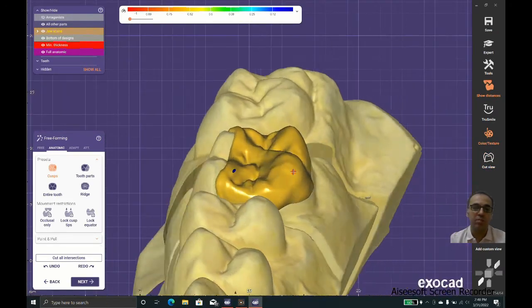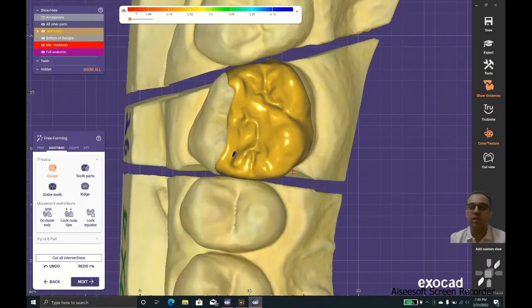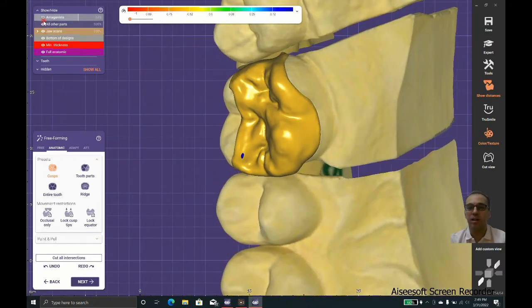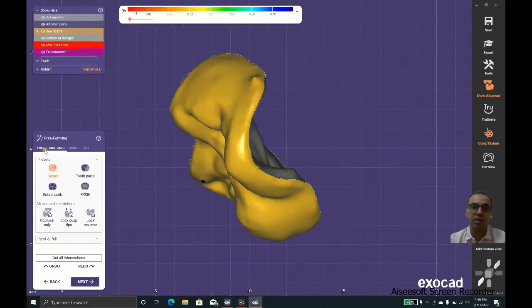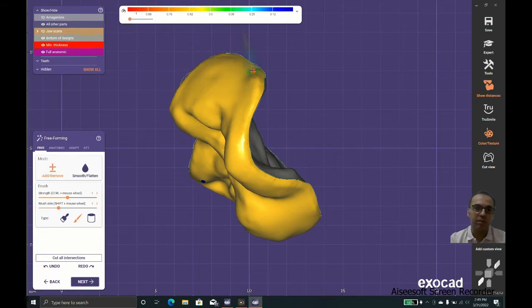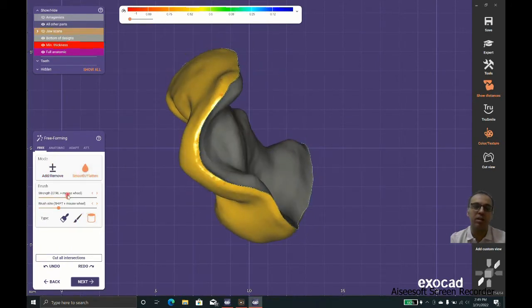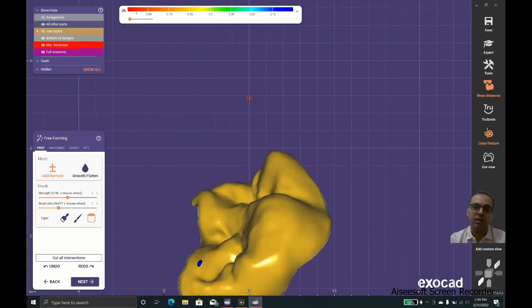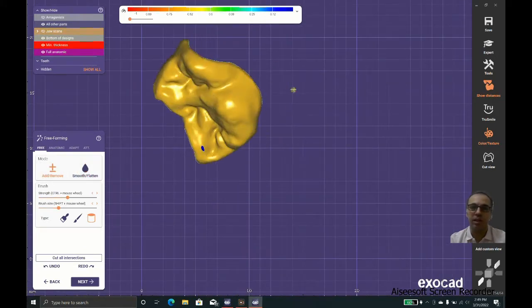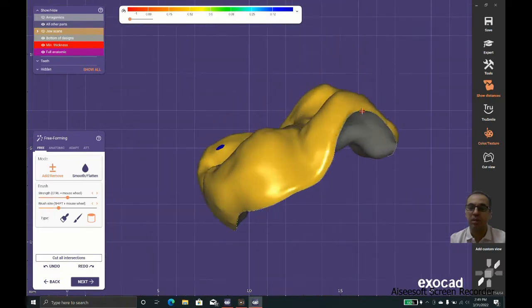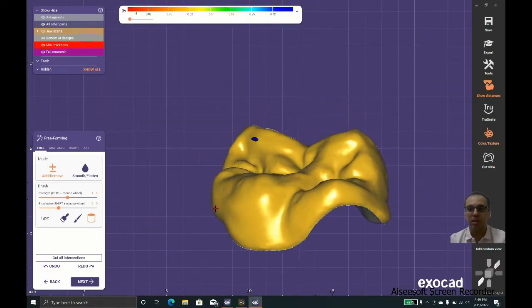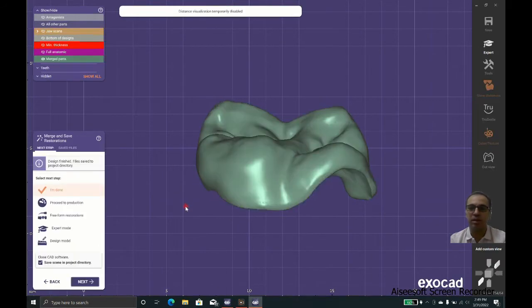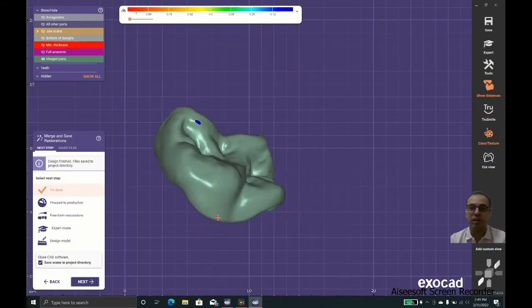There is a point on the mesial cusp that has less than enough space. In this distal part, there is a problem. We have a point that because it doesn't have enough thickness, the software doesn't allow us to soften it. In this case, the result is not good and I'm not satisfied with it.